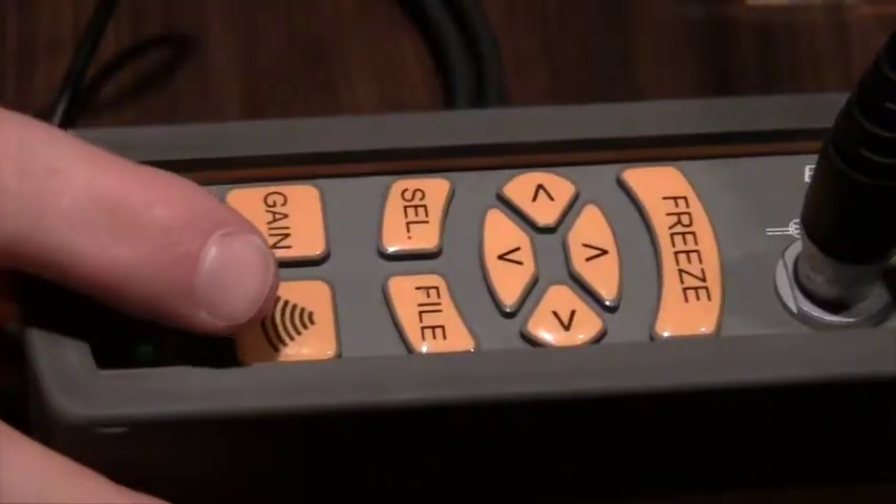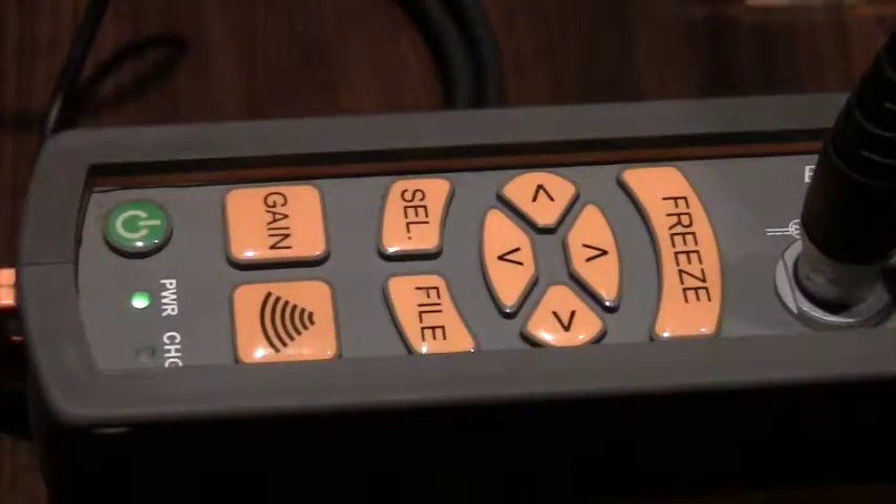The field of view will change your frequency, your depth, and your focal point in one button push.